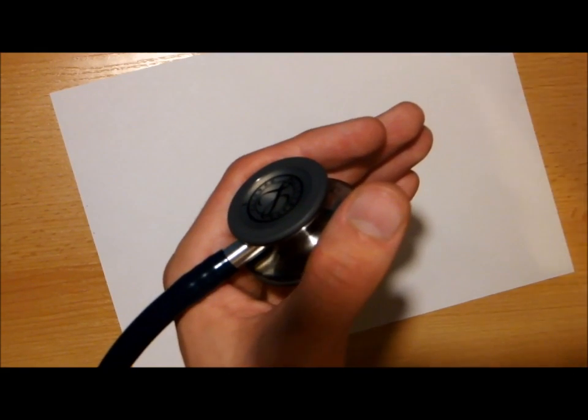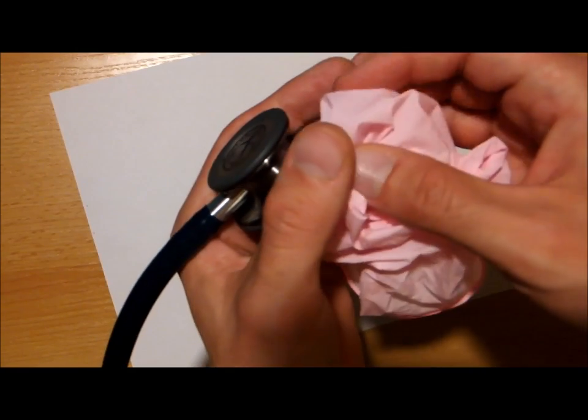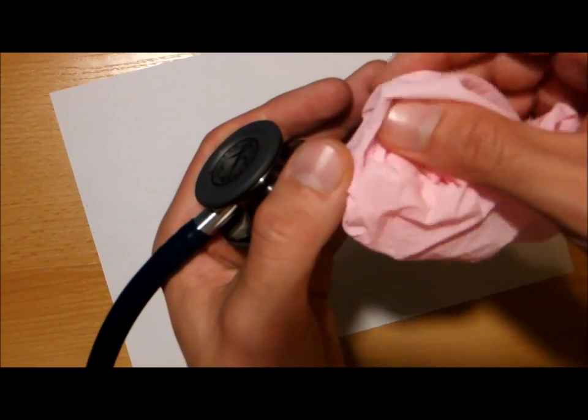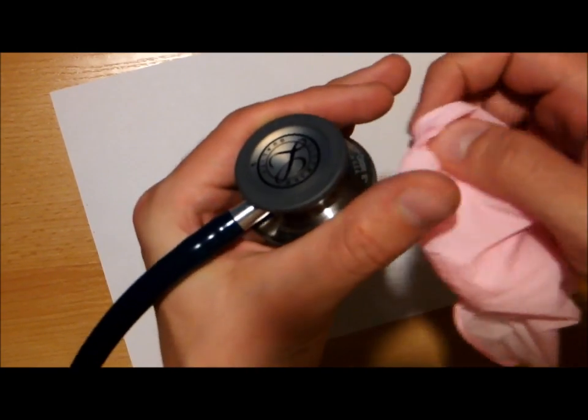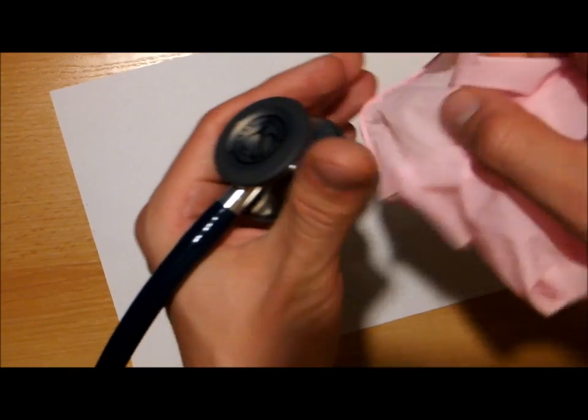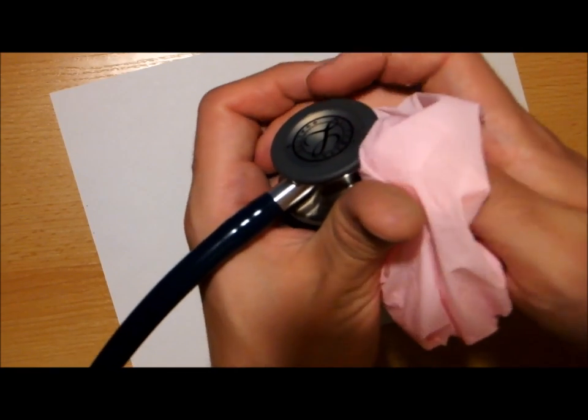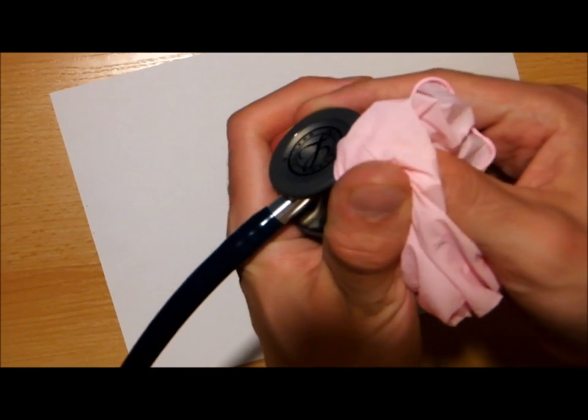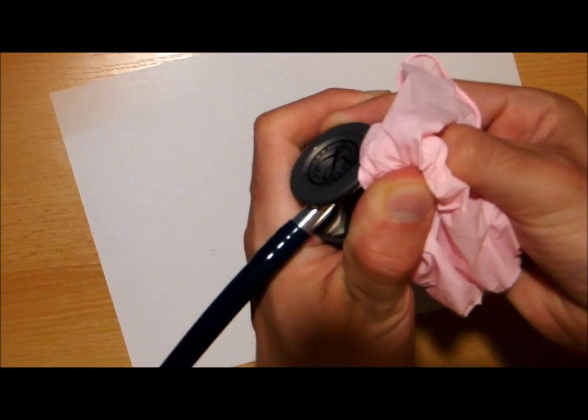So probably you will have to use the glove, but you don't even have to wear it, as they say in an official video. Just holding it that way, you try to do it with the glove. So using your thumb, you press it up that way.